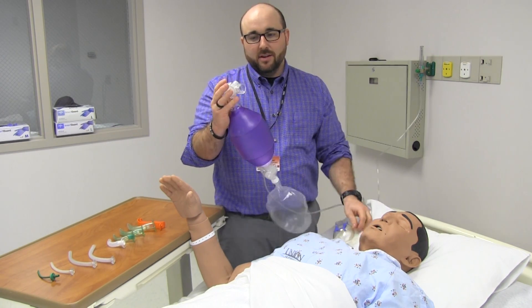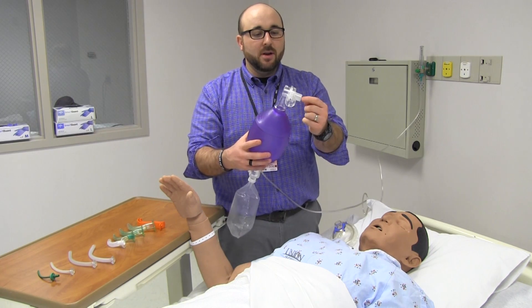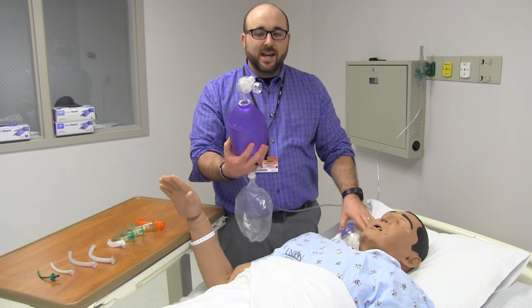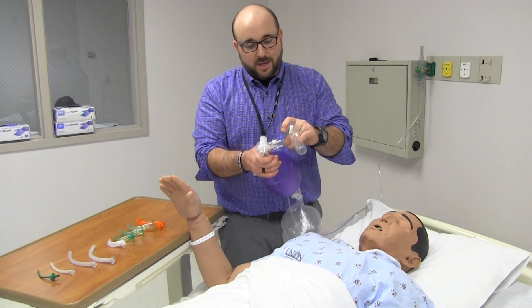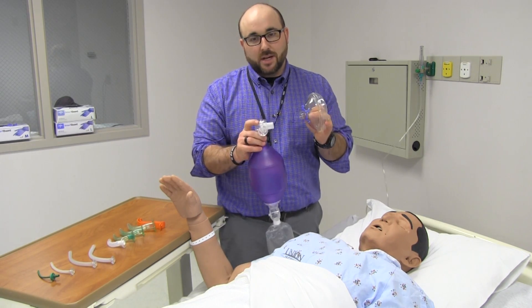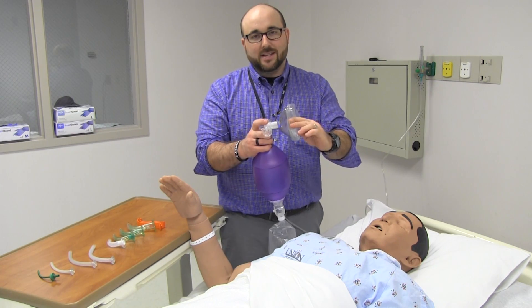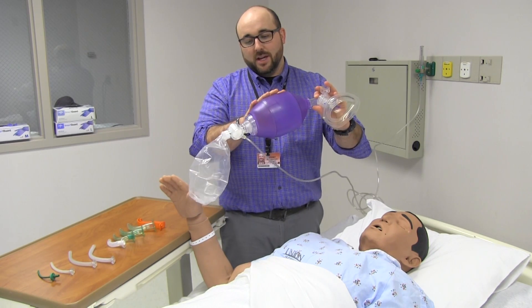The mask will come off of it. It has two different pieces: the piece that hooks up to the ET tube — endotracheal tube — or it hooks up to the mask. Then it has the exhalation side that makes this dummy-proof. You can't hook the mask up to the wrong side — they make it so it will not work. I've seen it tried multiple times in a code because people get nervous, but it hooks up really nicely to this piece right here. When I deliver the breath, it goes.